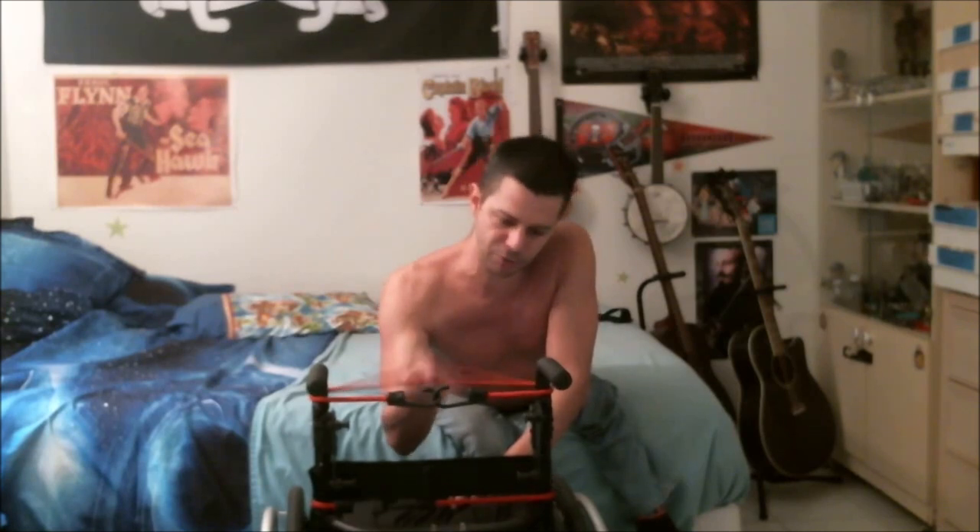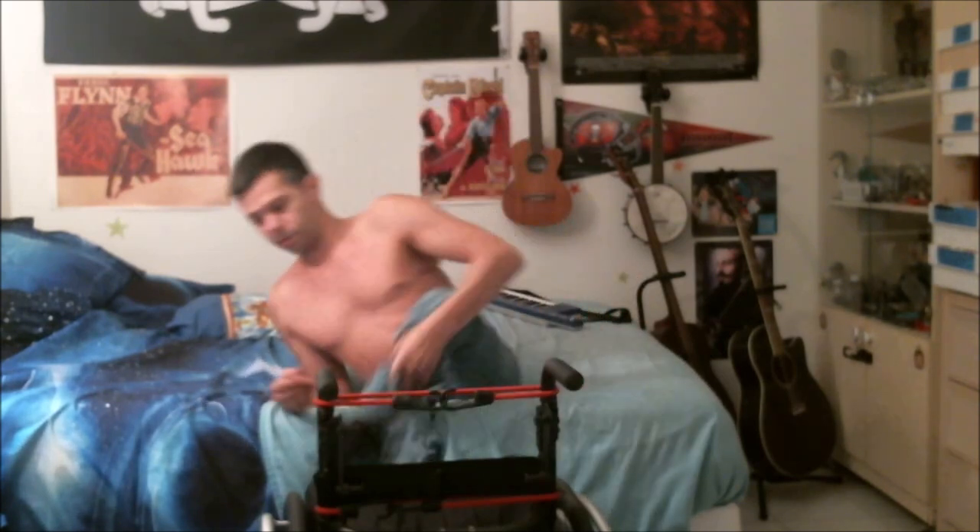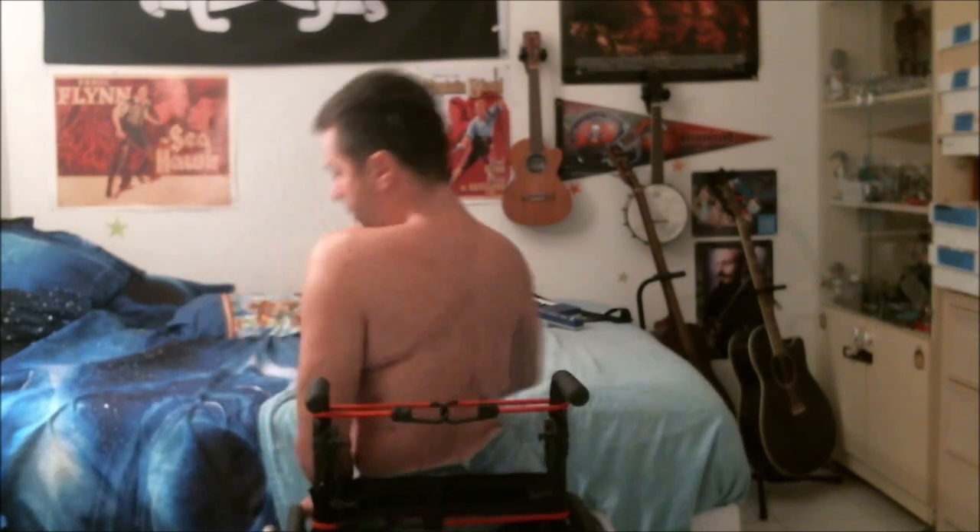You can see I have a bungee cord here — an orangish-red bungee cord — one down here and one right here. There's also a strap, and that strap is actually from this new wheelchair. It was one of the straps from underneath the seat, but I had to take it off anyway because I needed to put my pouch from the other wheelchair underneath the seat, and to make room for that I had to remove the strap.